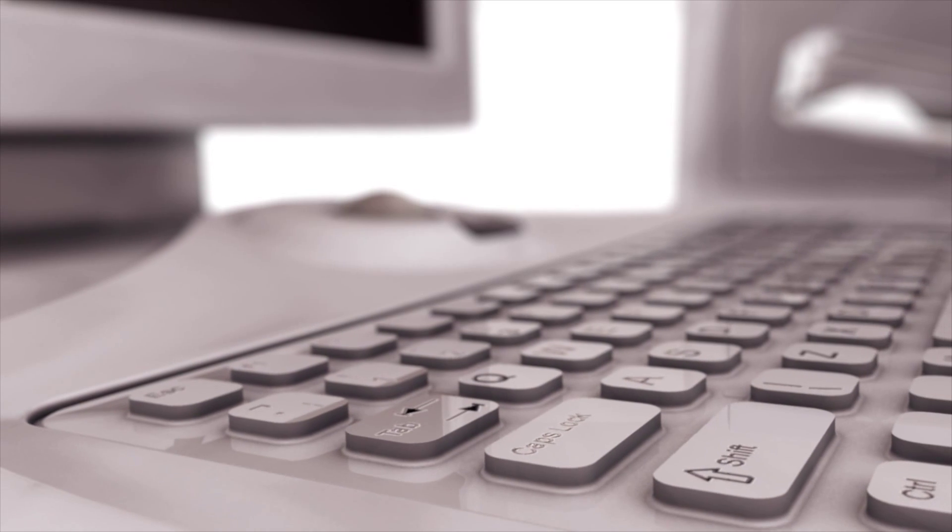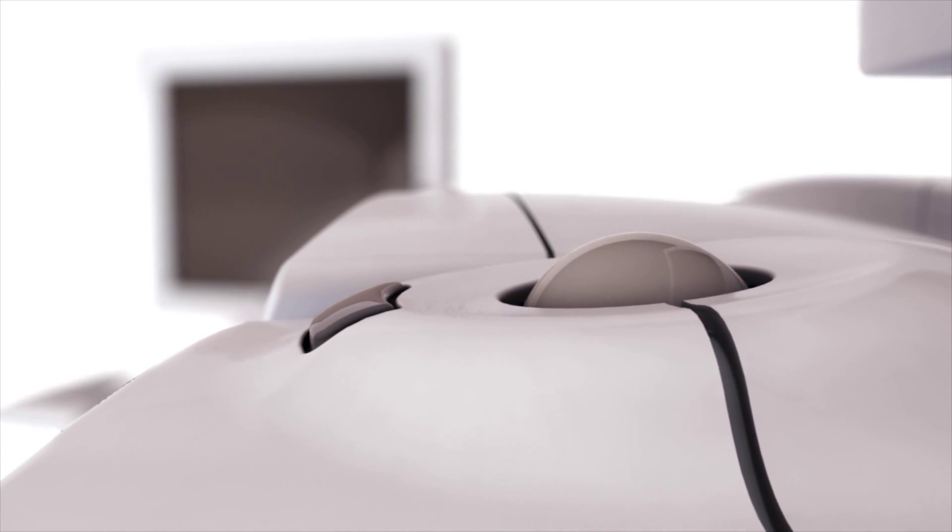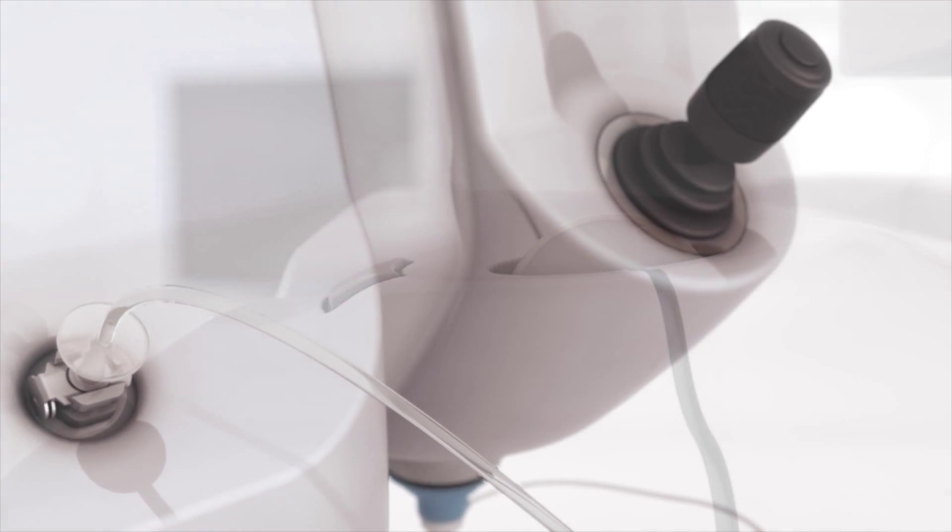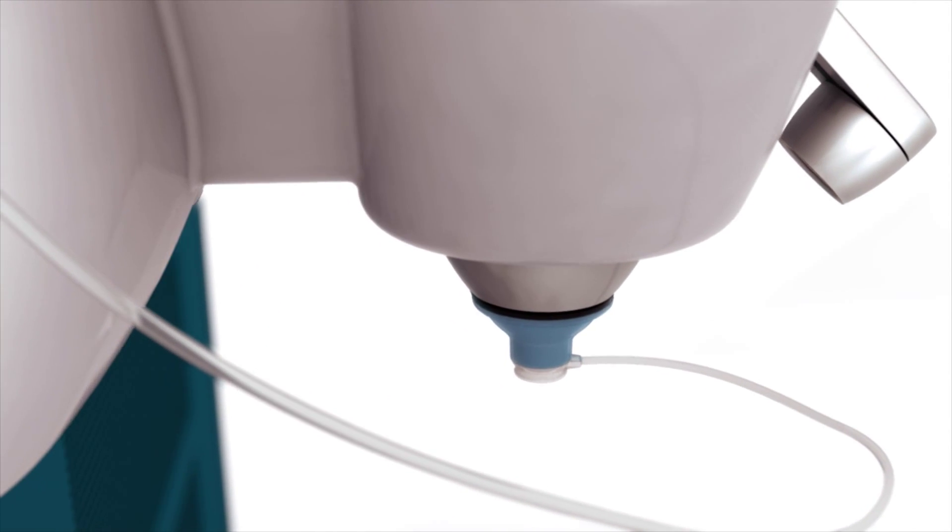The LensX laser is designed to predictably perform many of the most challenging aspects of traditional cataract surgery with highly reproducible computer precision. Capsulotomy, lens fragmentation, and all corneal incisions are created with image-guided surgeon control.